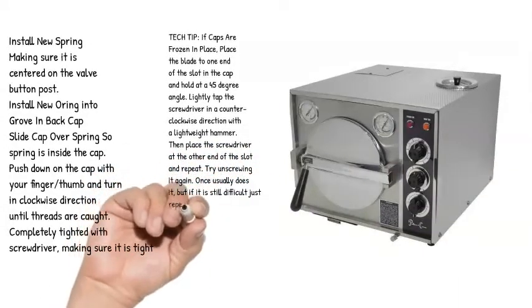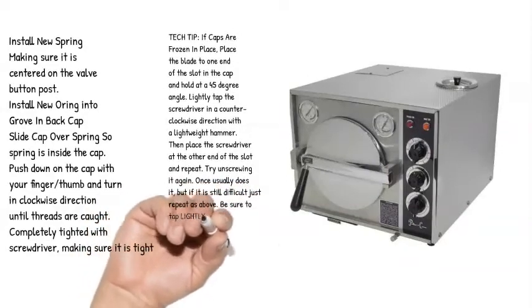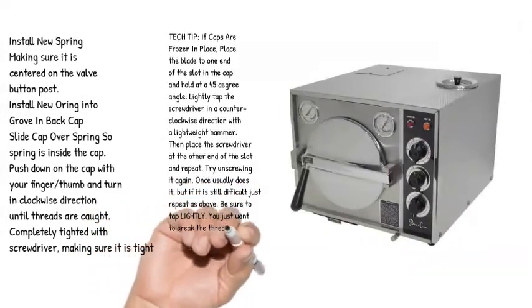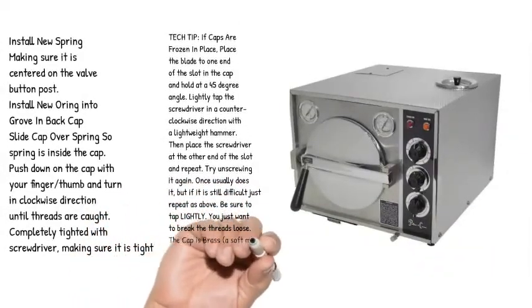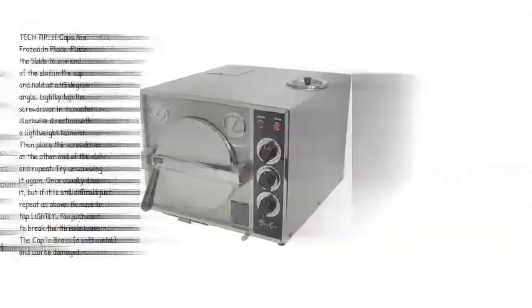Be sure to tap lightly. You just want to break the threads loose. The cap is brass, a soft metal, and can be damaged.